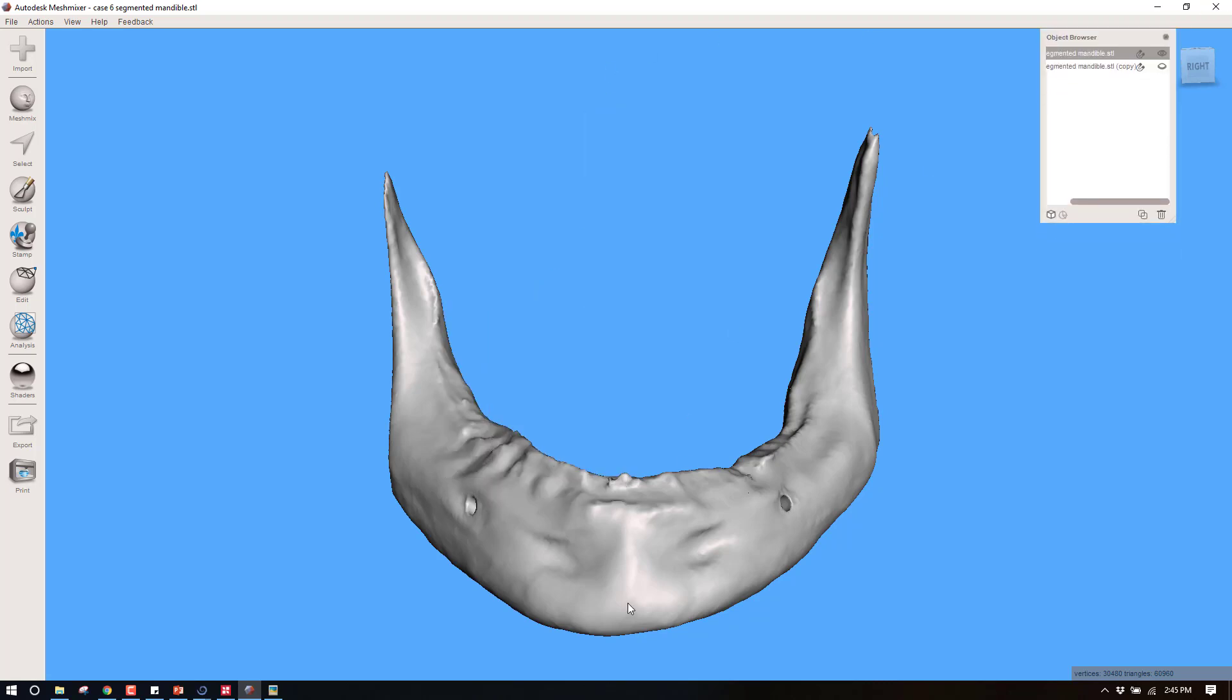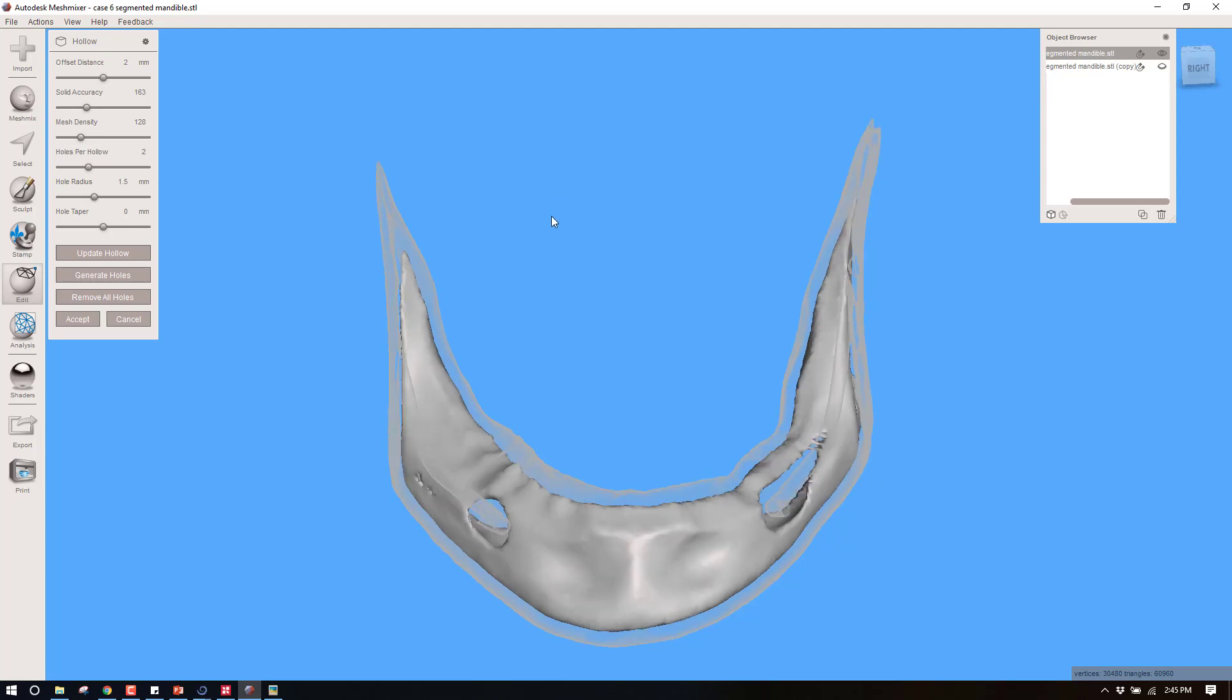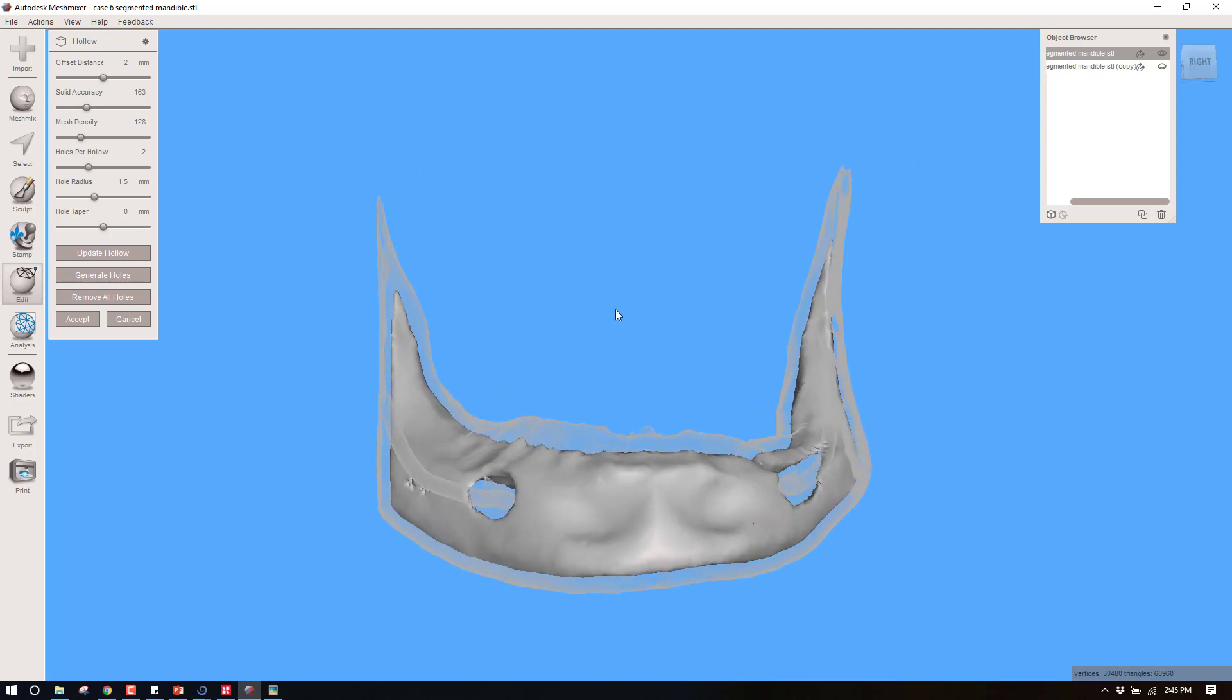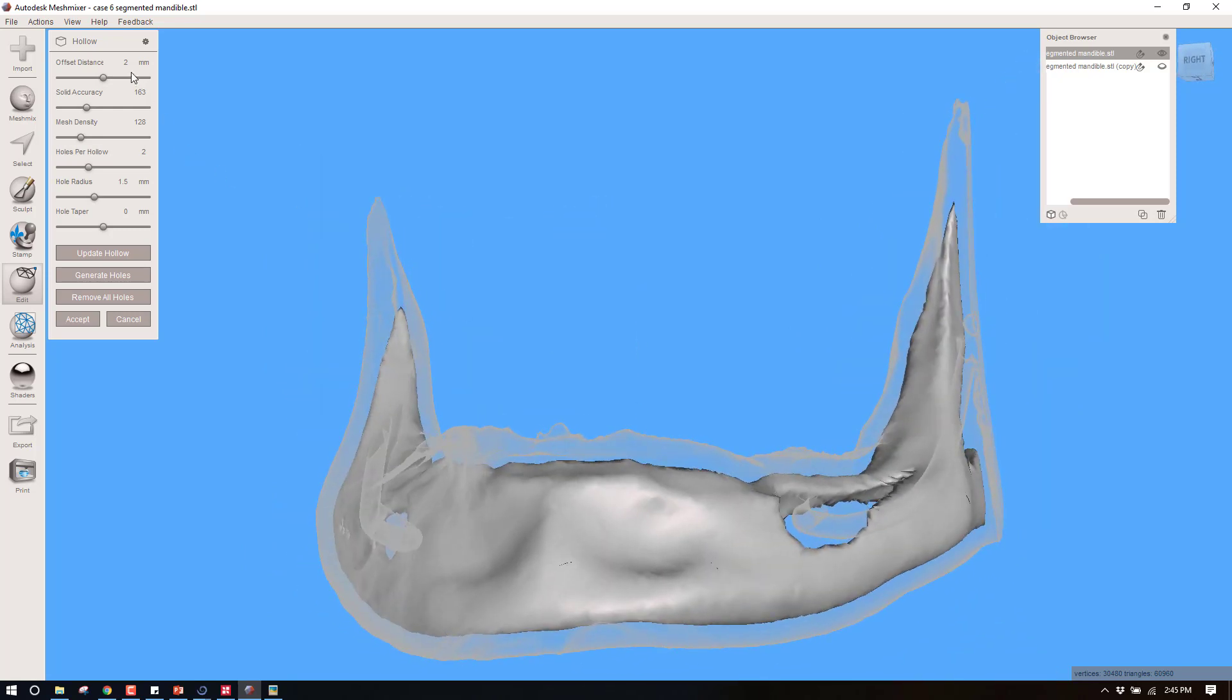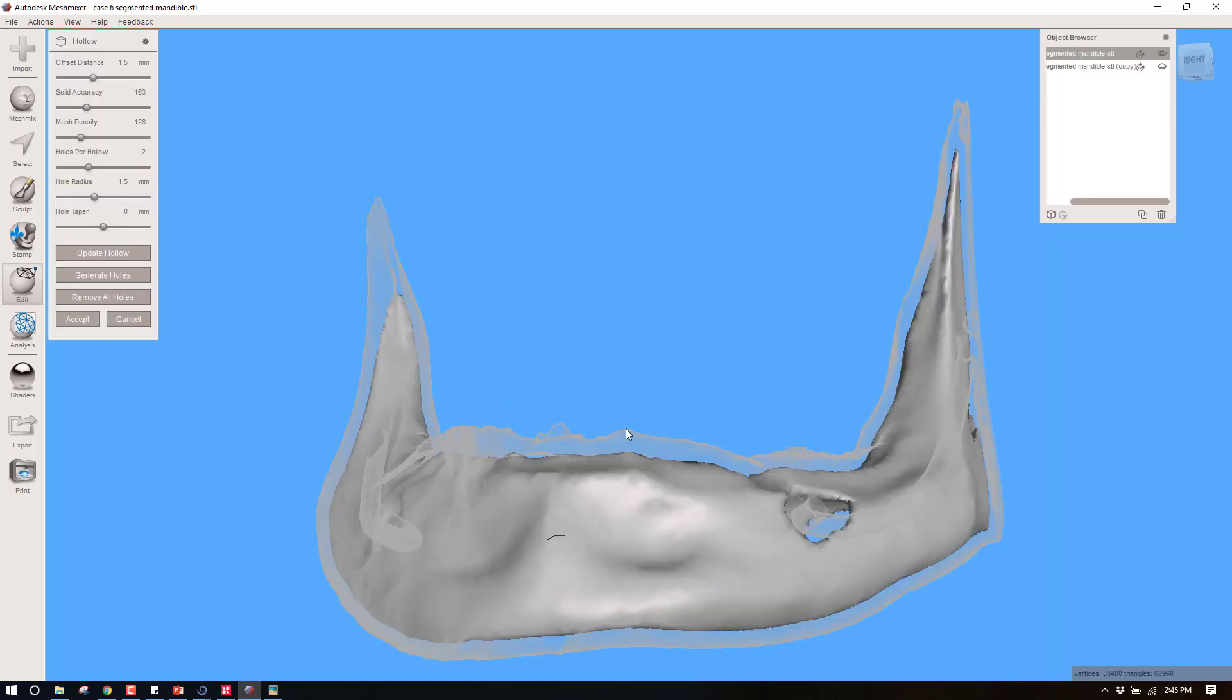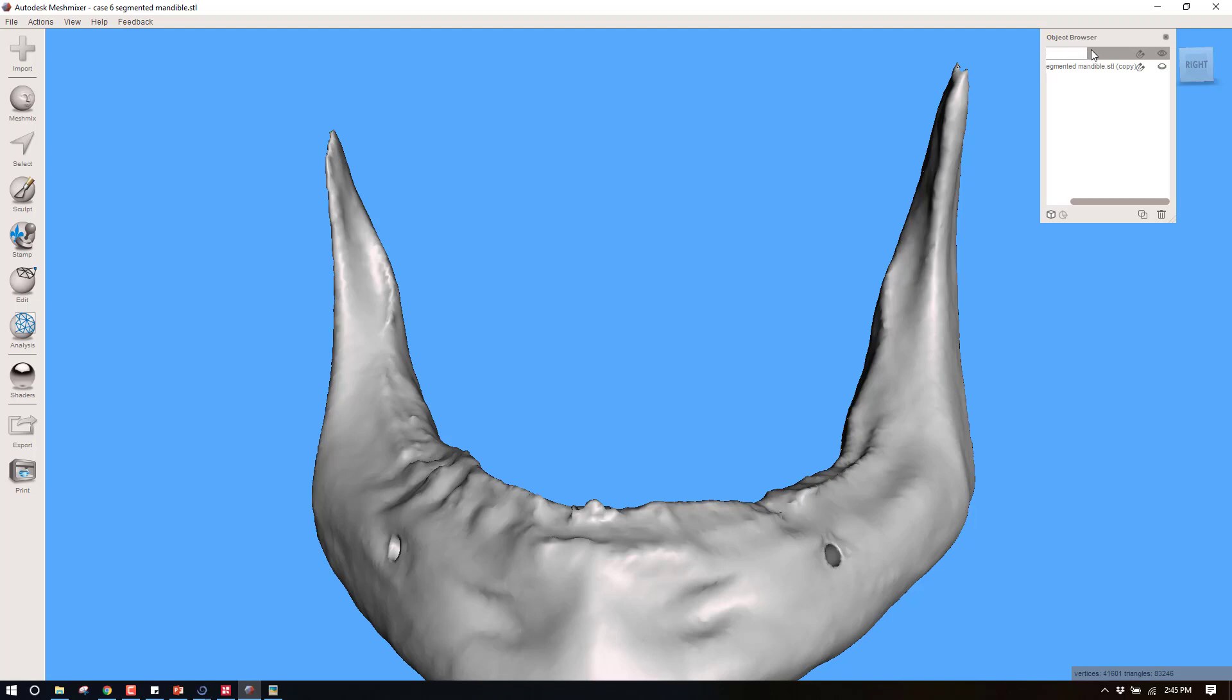Right now this is just a solid model and we're going to hollow this out. What thickness would you like your cortical boundary to be? Typically one and a half to two... let's go with two since it's defaulted to that. We'll go with a two millimeter cortical boundary, so that's going to be the thickness of the cortical bone that you'll be drilling through. Actually let's bump this down to 1.5. Update the hollow. Okay, I like that a little bit better. I'm going to accept this and I always relabel these: 1.5 hollow.